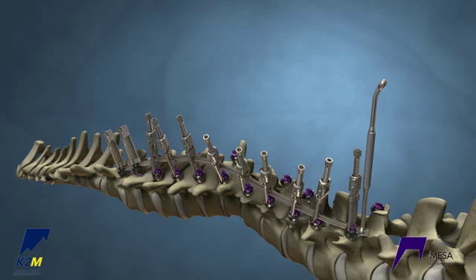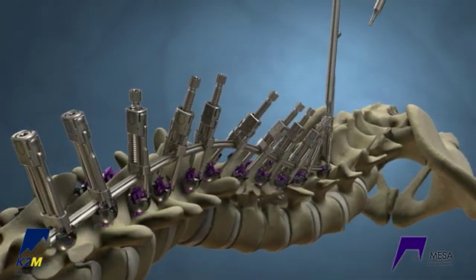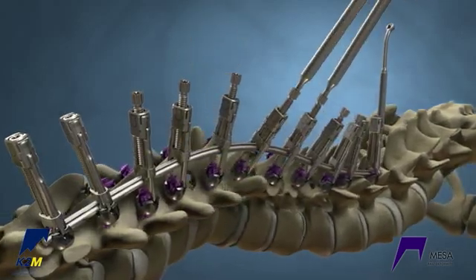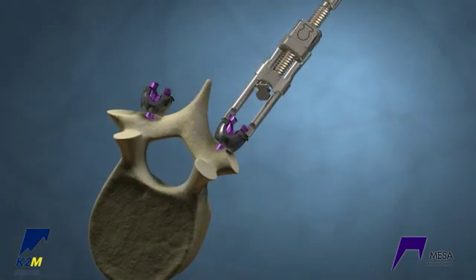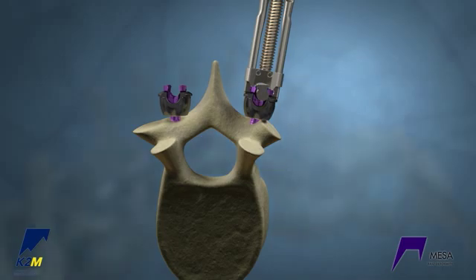Tighten the remaining rail crickets until they kiss the rail. Starting at the proximal end, gradually reduce the crickets. Due to the beam-like design, reducing the rail crickets will inherently result in rotation of the vertebral bodies as they are pulled up to the rail.